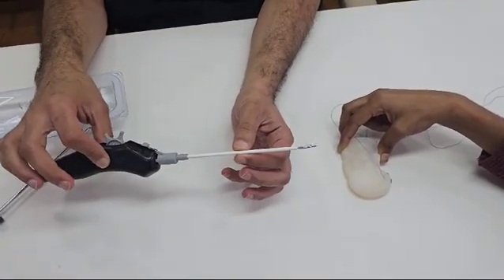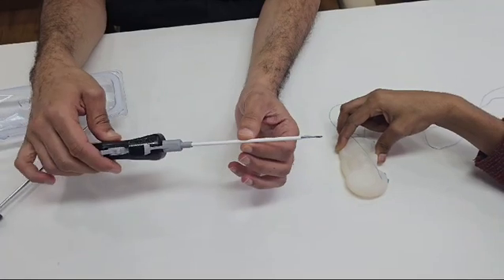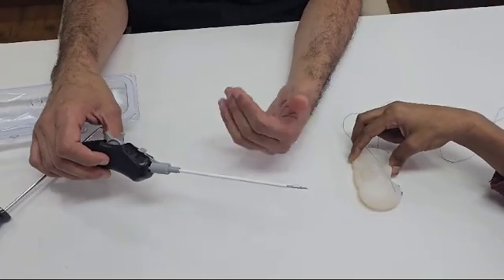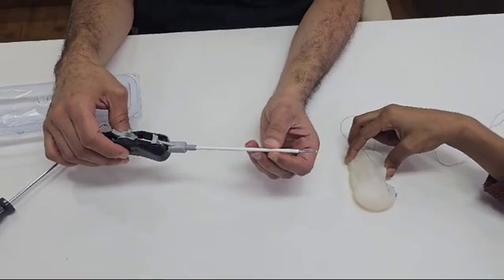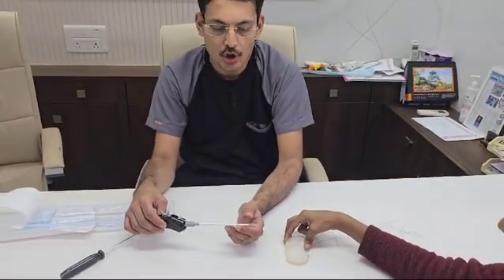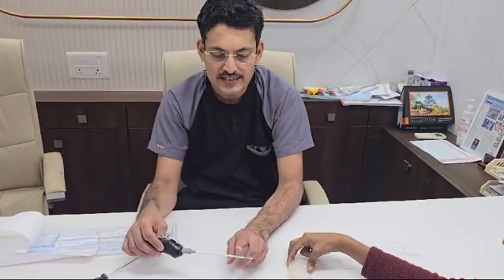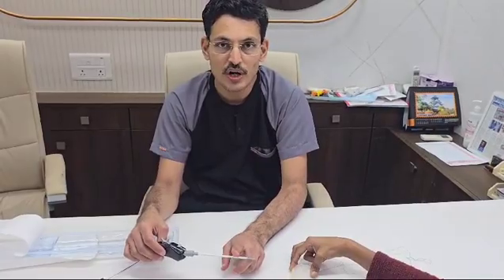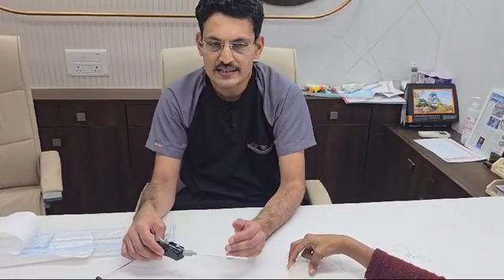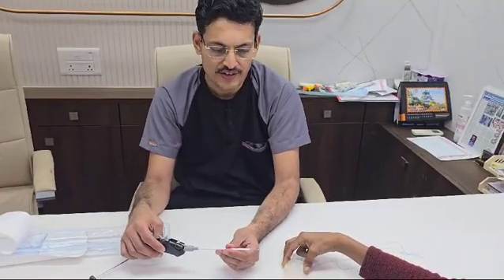Another important thing which we should understand about this implant is this is an all-suture implant, which is a generation ahead of the PEEK implant systems which are available in the market. The PEEK implant basically has a knot on the top of the meniscus, whereas in this particular implant the knot will be sitting on the back side of the meniscus. That is why there is nothing which can rub onto the surface.